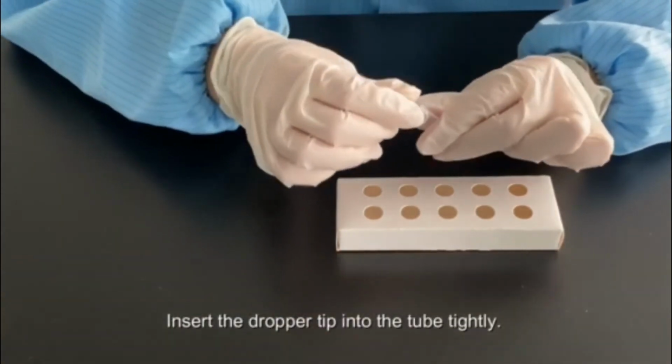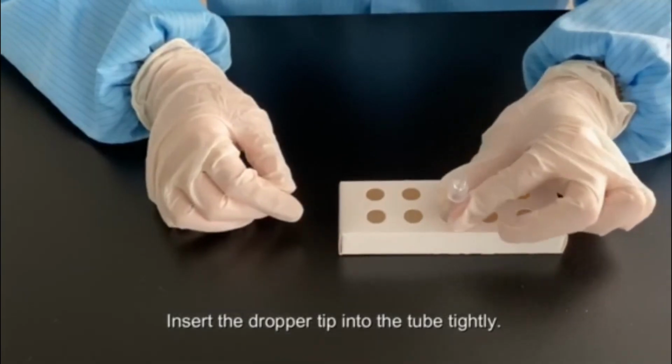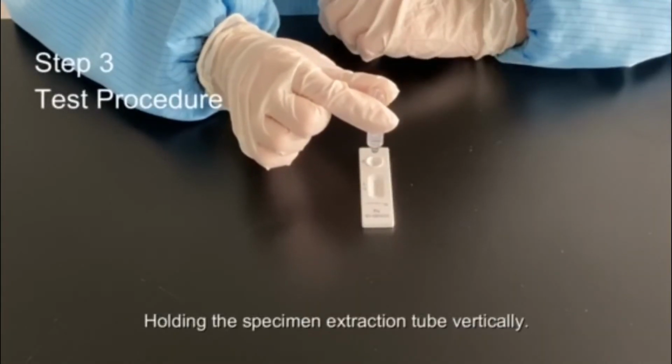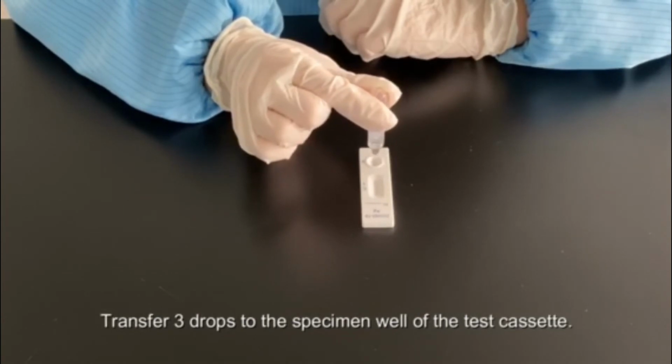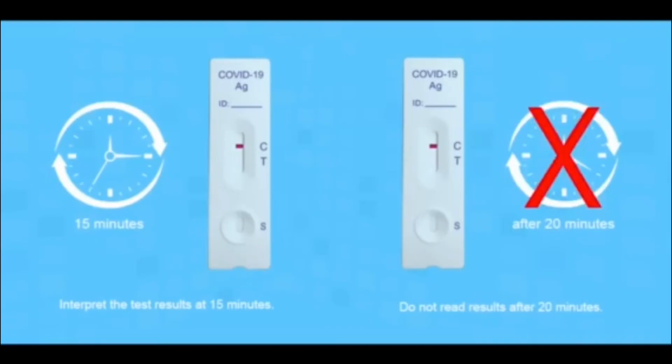Insert the dropper tip into the extraction tube tightly, holding the specimen extraction tube vertically. Transfer 3 drops to the specimen well of the test cassette. Interpret the test result at 15 minutes. Do not read result after 20 minutes.